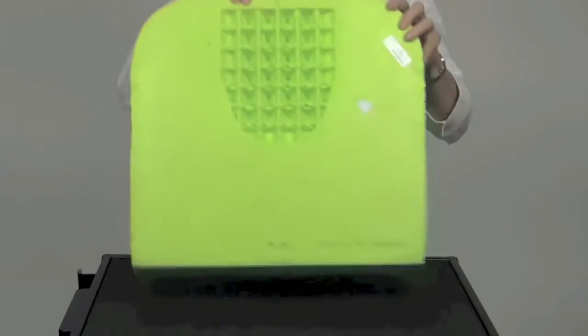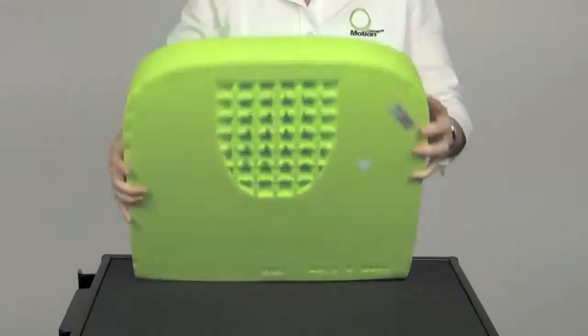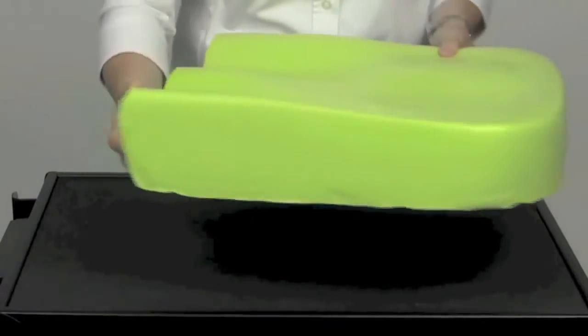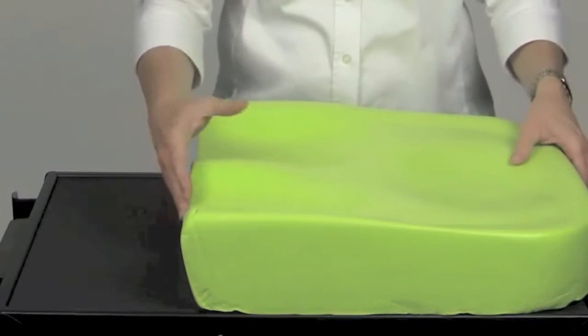The waffled pelvic area provides immersion of the ischial tuberosities, which promotes pelvic stability. This cushion is an ideal product for clients who are foot propellers, such as a CVA or stroke, or lower extremity amputee.